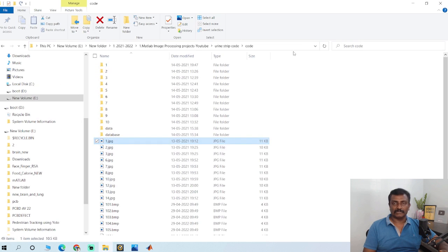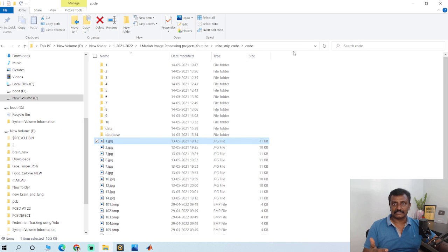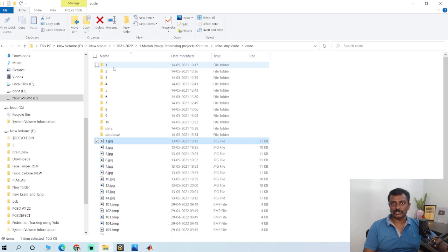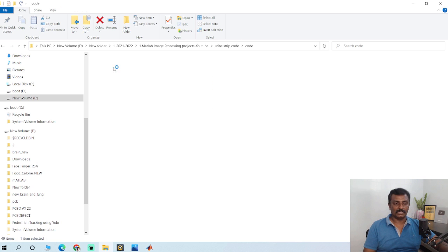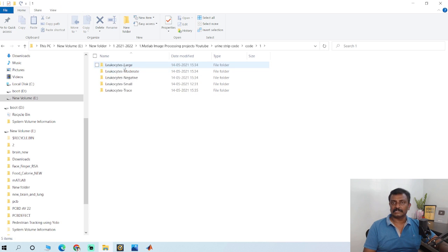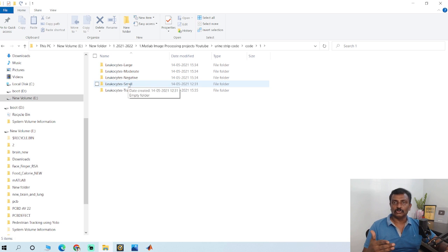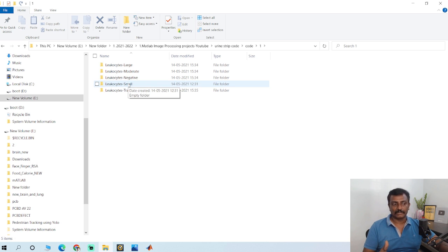the first thing is you have to train the classes. It has 10 different types of colors, each color has five classes. We have deployed CNN for training these classes.